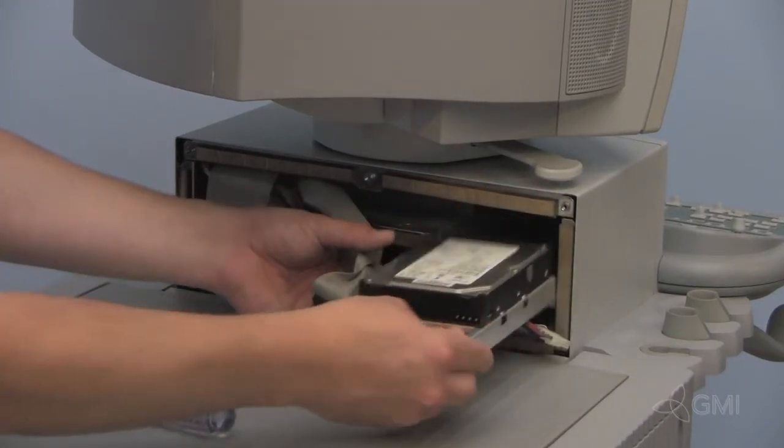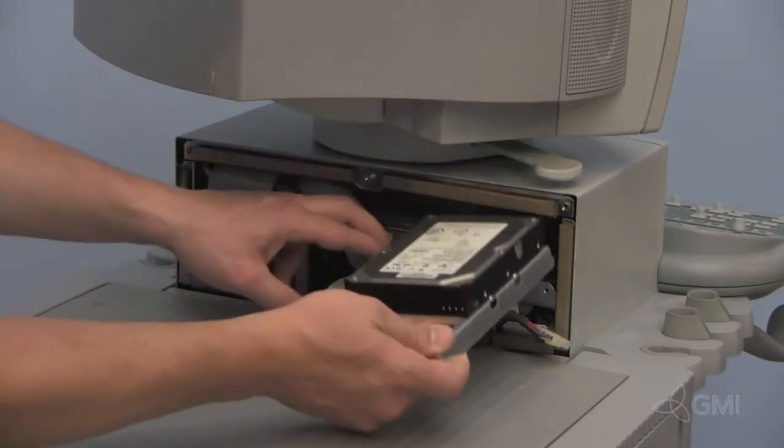Lift up and slide the drive assembly out. Install the new hard drive.